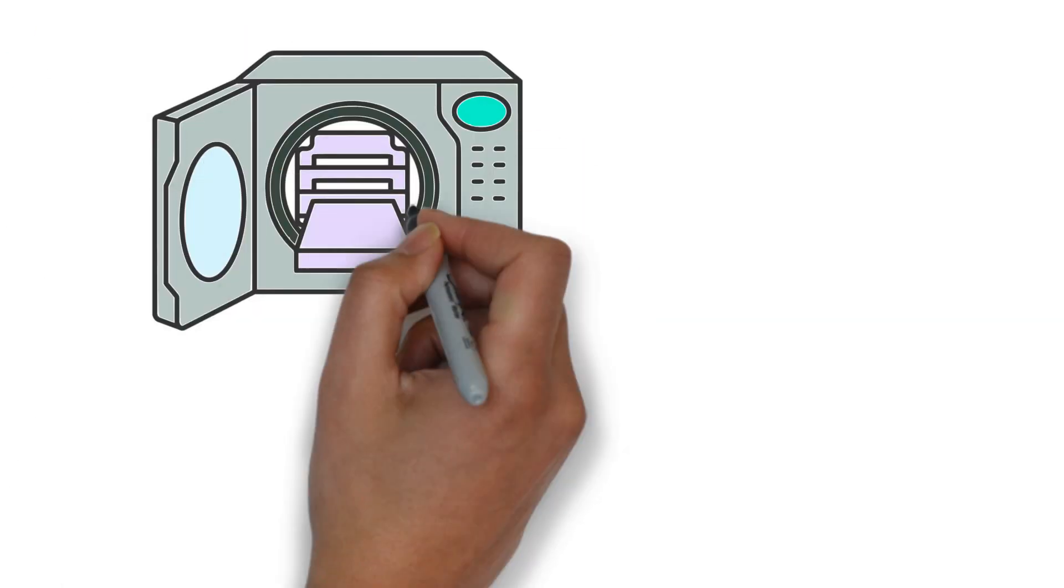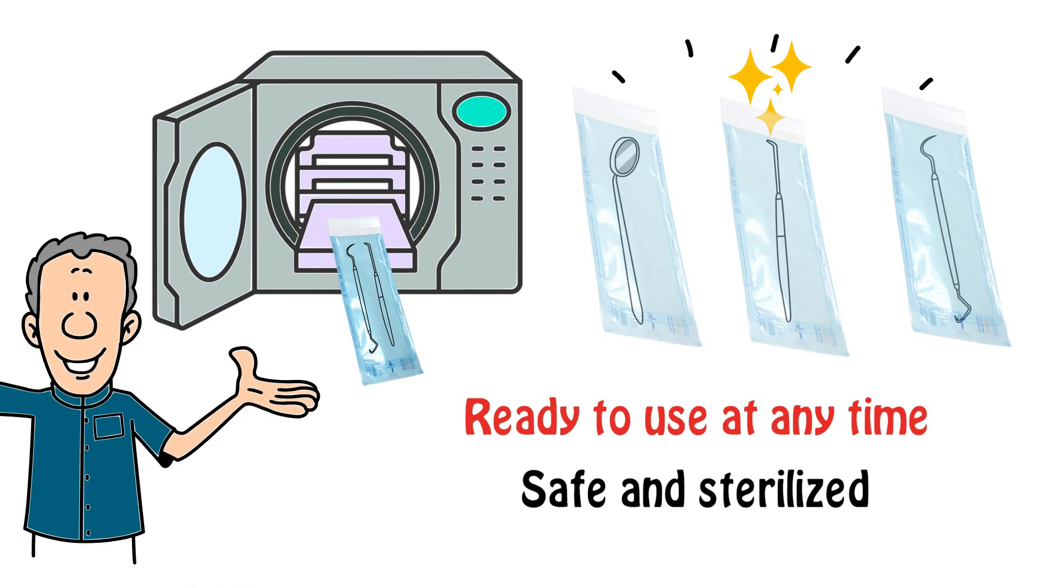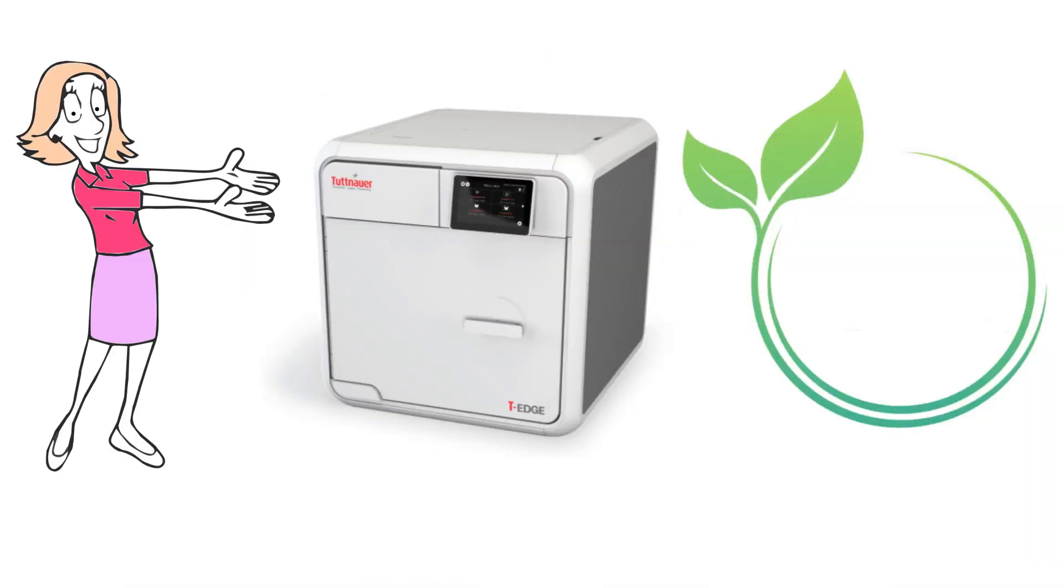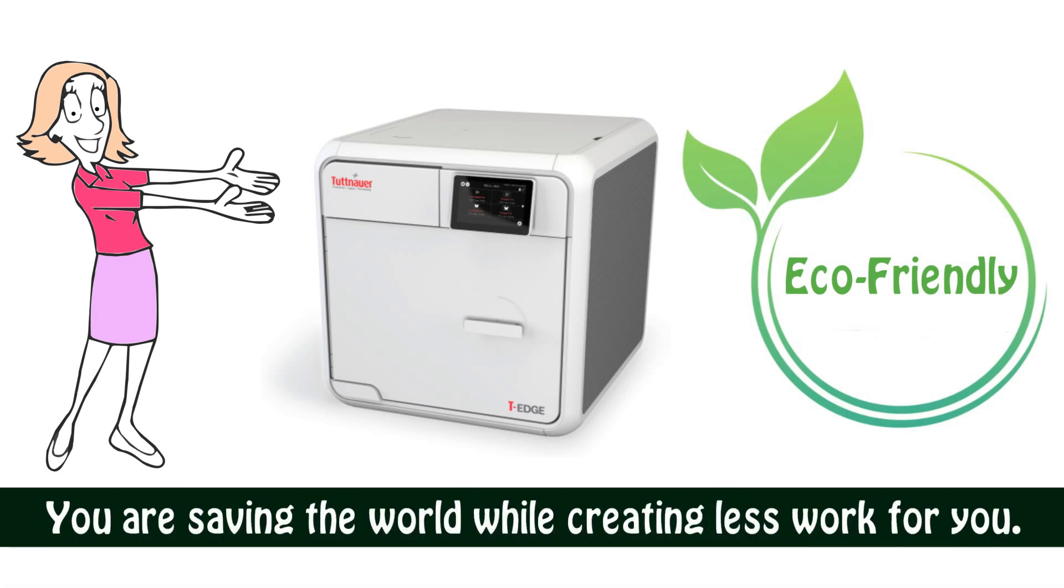That your instruments will be ready to use at any time, safe and sterilized for the clinic personnel and patients. A machine that is eco-friendly and paperless, you are saving the world while creating less work for you.